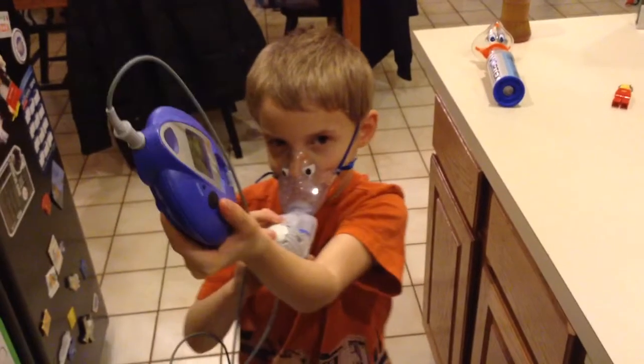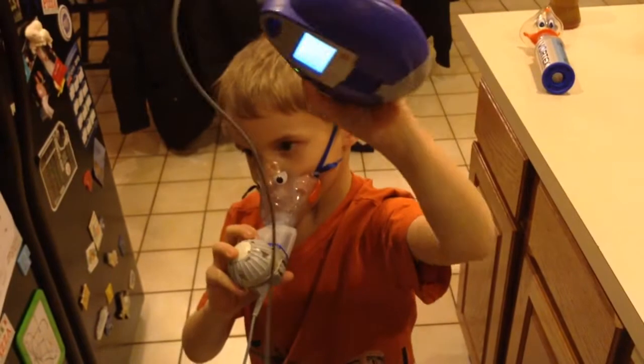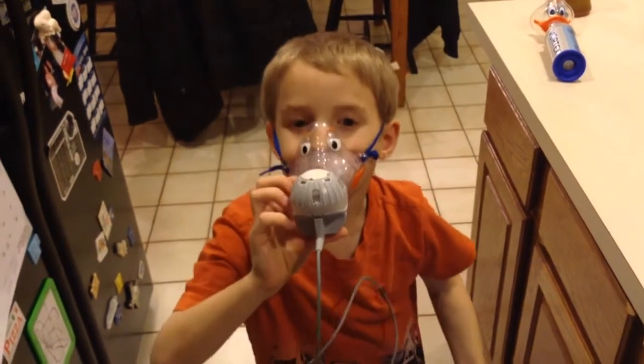This is, you see this black button? See this? You hold it down once. Start to feel it and you start breathing.